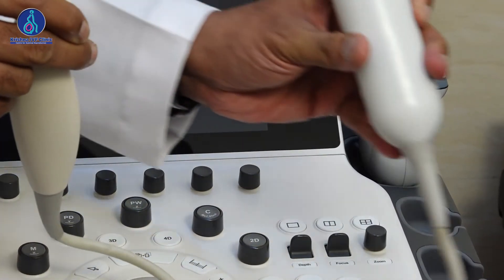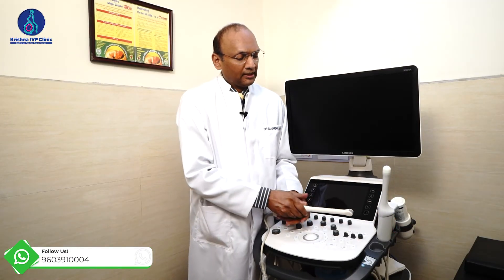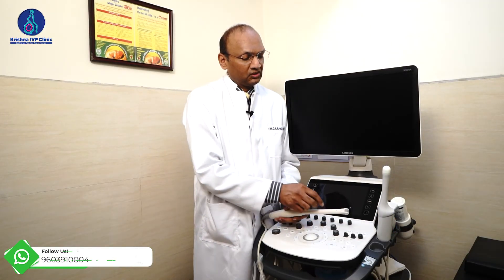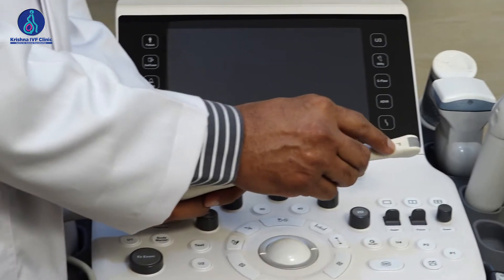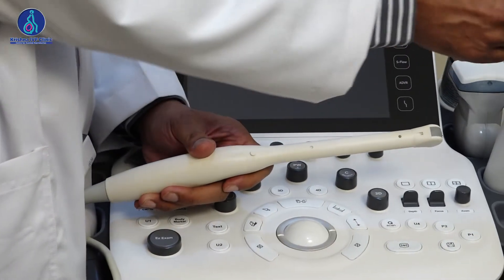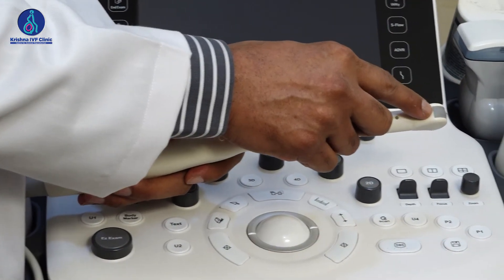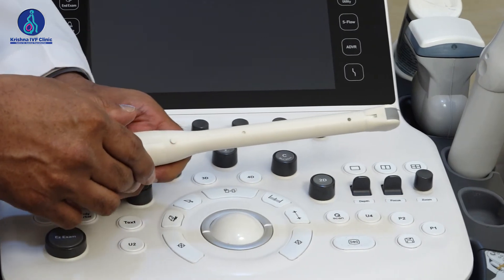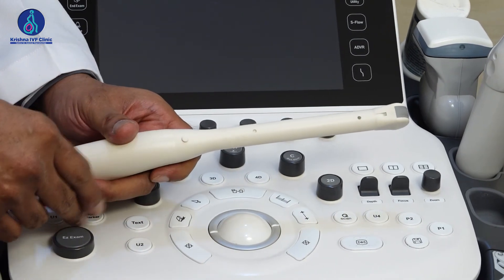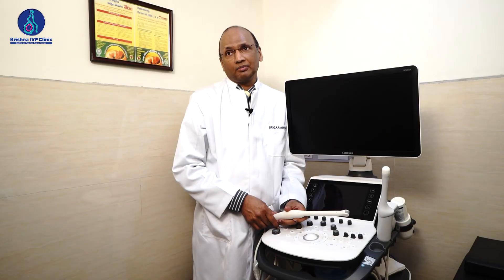The difference between that probe and this probe is it does not have as many joints. These probes are also much lighter because they don't have any mechanical components.